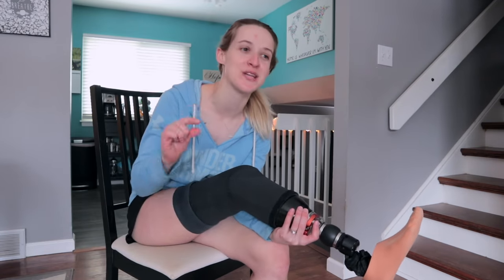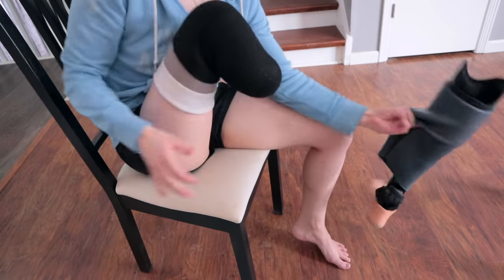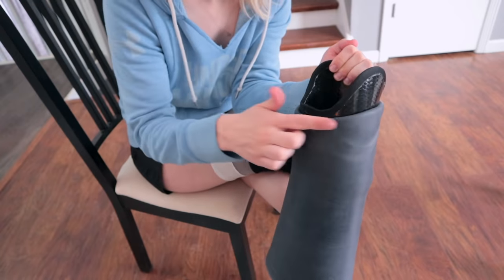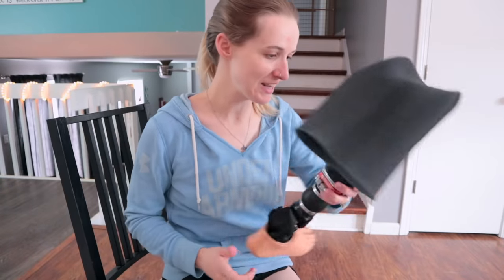The holes can be so tiny that they still let air out, so I'm going to take a close look at my sleeve. I roll it off, pull my leg off carefully so it doesn't go crashing to the ground, and inspect all through here for any openings. This seems like a perfectly good sleeve, which makes sense because it's so new. It's a little bit hard to detect holes because it's all dark with a semi-consistent pattern and you have to pull it apart a little bit to see where something might be opening up. So far so good — let's move on to possible solution two.